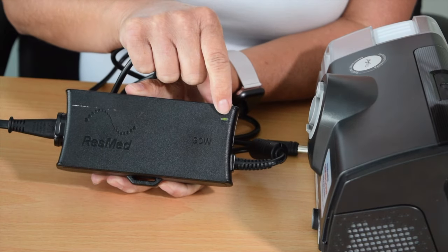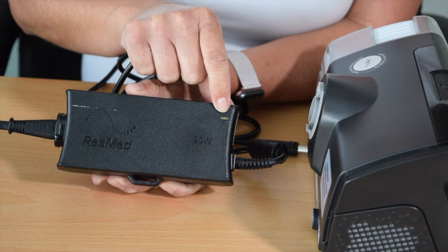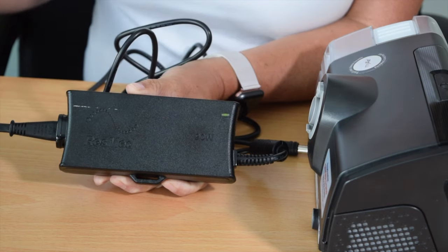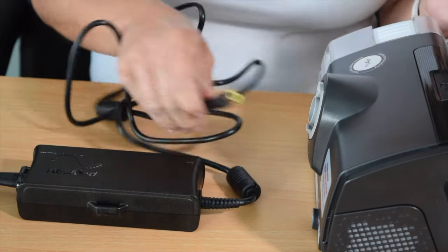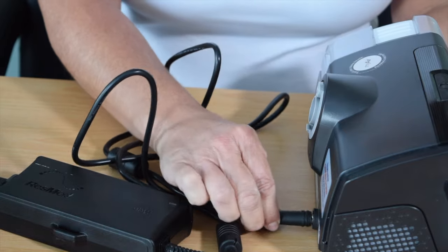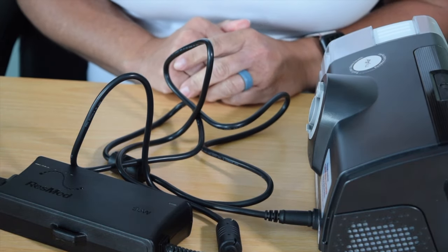The indicator on the cord that's plugged into the wall is a green light. You want to check to make sure that green light is on — that'll tell you that this cord is plugged into the wall. Then you need to push your power source into the device all the way. I always have patients check the power cord from the device to the wall, checking both connections to make sure they're tight. Also check to make sure that plug is not on a switch, because if the switch is off you're not going to have any power. Nine times out of ten, checking those few things will fix the issue with the power source.